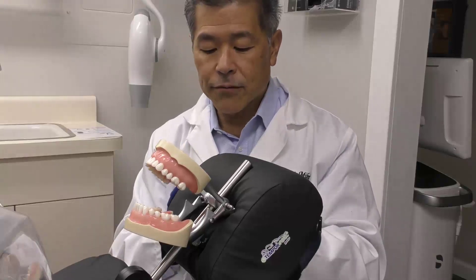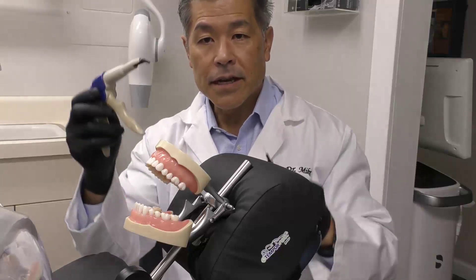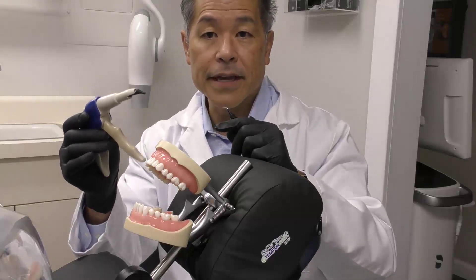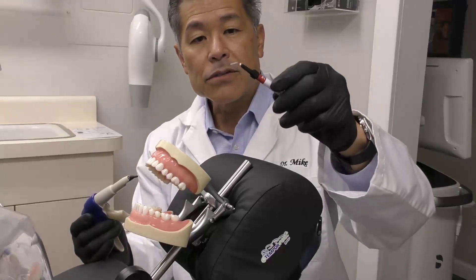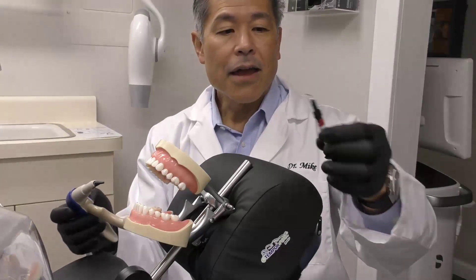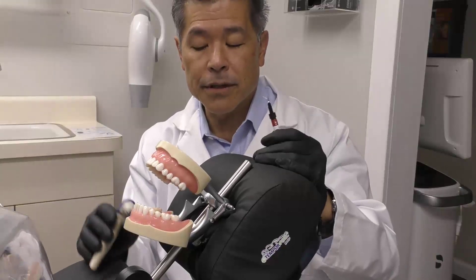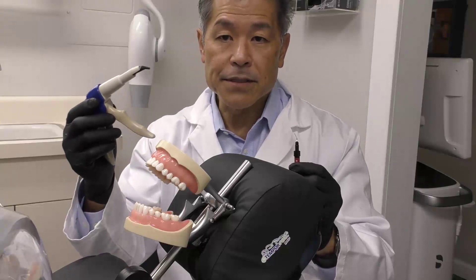I've got a question for you. Why do we have two different composites? We have the flowable composites and the sculptable composites. We use the sculptable composites because they're more highly filled — they have better physical properties and typically polish better. But we also have the flowable composites because they're less filled, they're more runny. If I place that in my preparation, I can line the internal aspect, get great adaptation to the tooth and the preparation, and then over my flowable I'll place my sculptable.